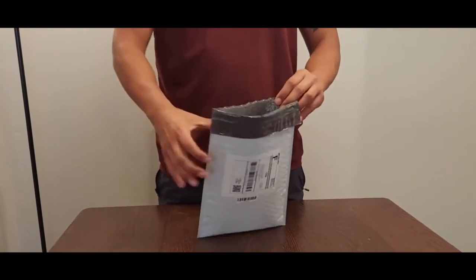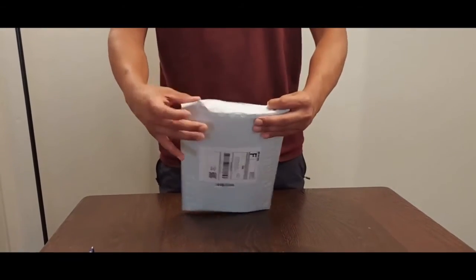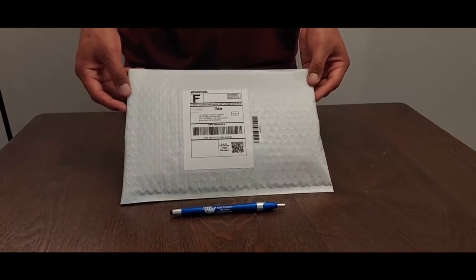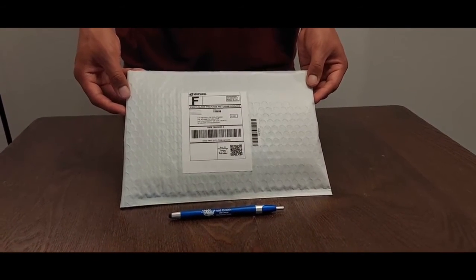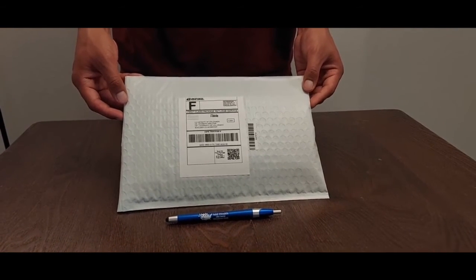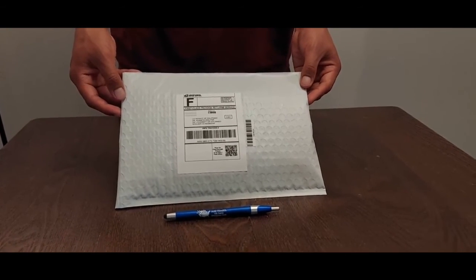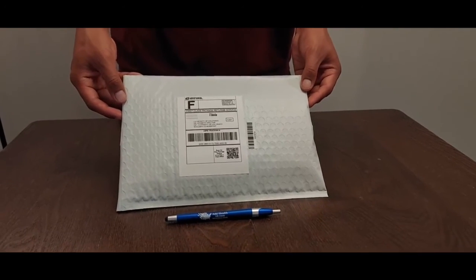Remove the tape on the padded envelope flap and close it firmly. Postage is already paid for, so just drop it in any U.S. mailbox or U.S. post office. It is important that you send us your sample as soon as possible after collecting it, preferably the same day. Do not store it in the refrigerator or freezer. If you must wait a day before mailing, just keep the package at room temperature.